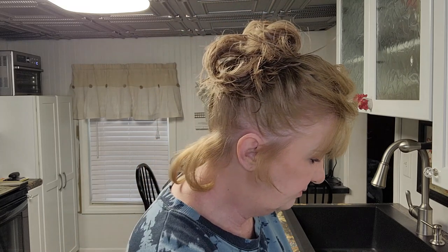You press the ball in — several different balls around your denture — then you bite down and hold. Same concept as the gum guard putty, but this will eventually thin out in your denture over time. You just keep filling your denture up, same concept — bite down.